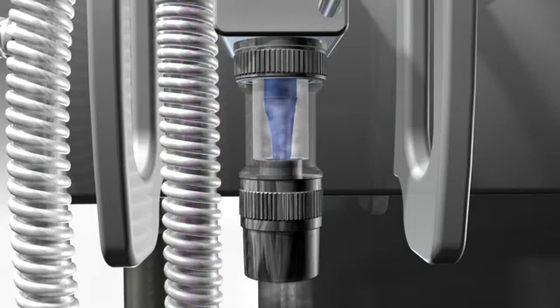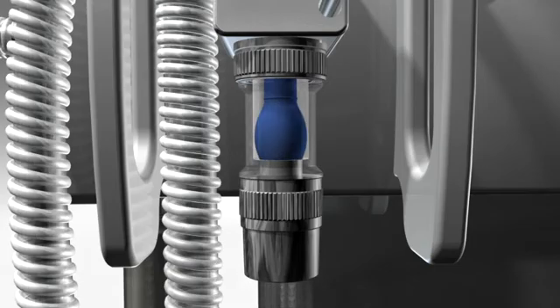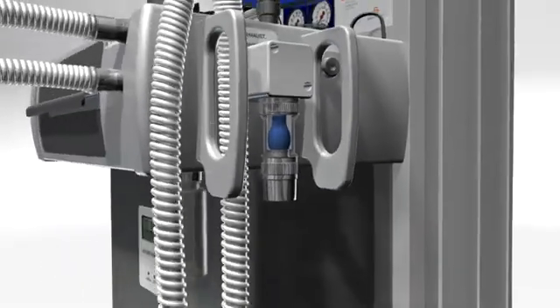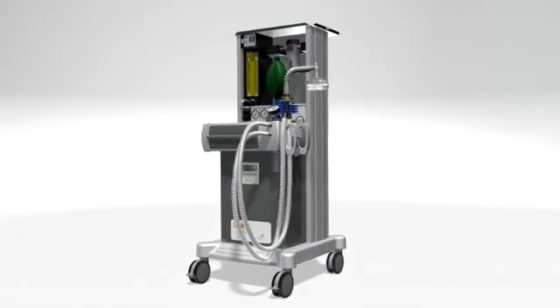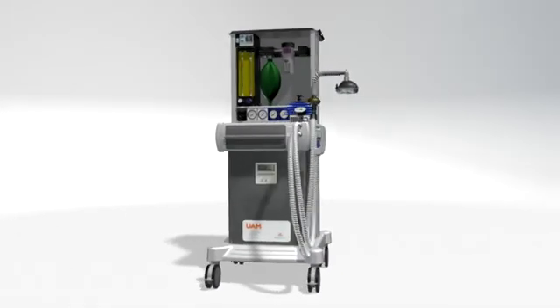During expiration, the balloon empties and opens the exit port, allowing exhaled breath to flow out through a final one-way valve to a scavenging device. The UAM always produces the correct supply of anesthetic gas for the patient, in any environment where surgery is performed.